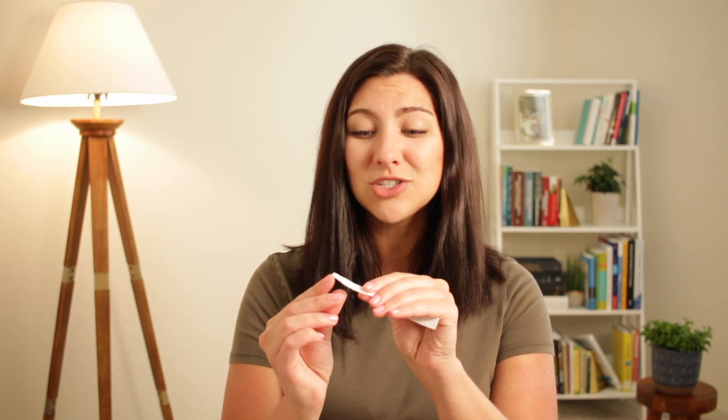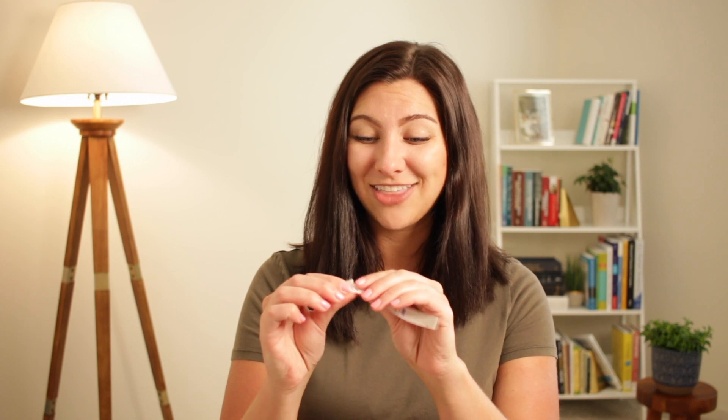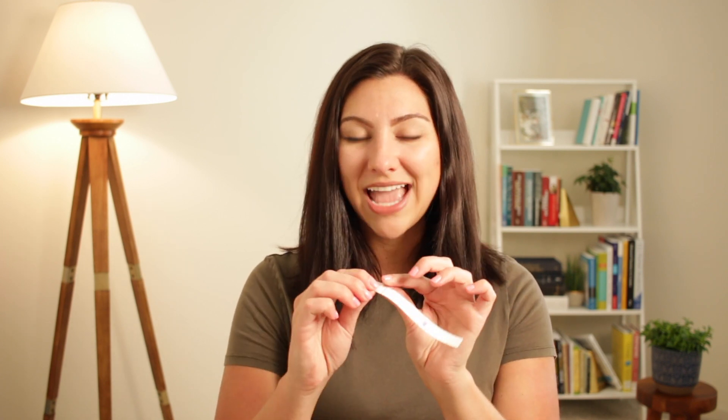Another part of the preparation phase is to prepare the tape you're going to use to secure the ET tube to the neobar platform itself. Typically a half-inch cloth white tape does just fine. You'll need no more than four to five inches, but it's important that when you cut your tape, you also include what I like to call courtesy tabs. Courtesy tabs are a safety feature — you'll do this on each end of the tape. All that you'll do is fold over some of the tape sticky side together onto itself.